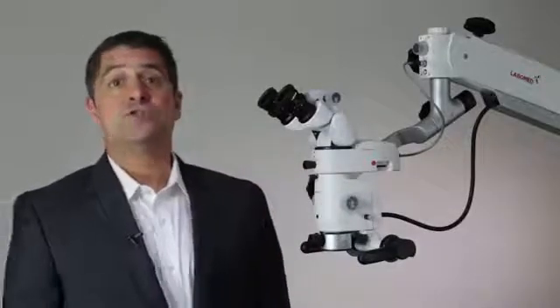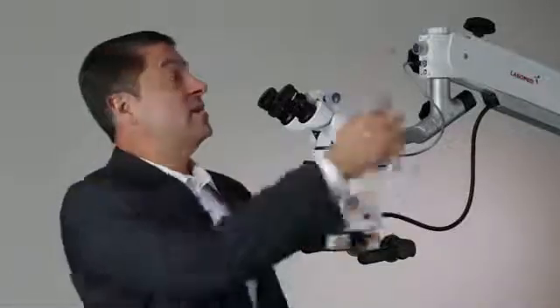Output options include 1080p streaming through HDMI, an SD card slot for on-device capture, and a USB connection for accessing our powerful Pixel Pro capture software. This is an all-in-one camera that also maintains the microscope center of gravity as a unique inline solution. Each microscope is pre-wired with power for the iView S5 with this convenient power connector.